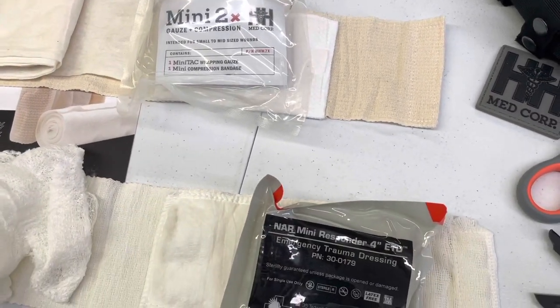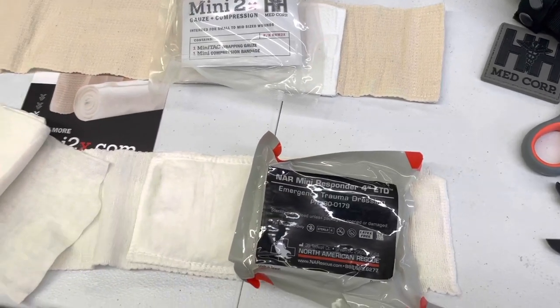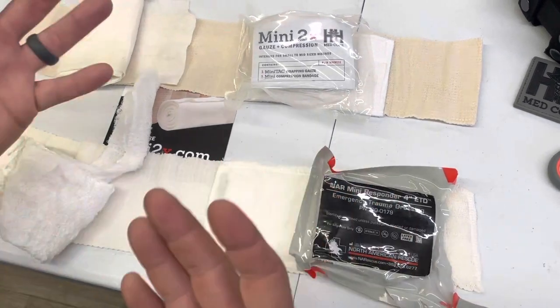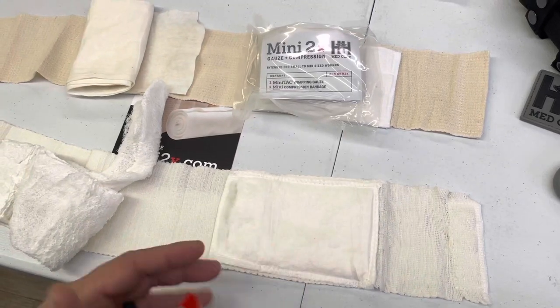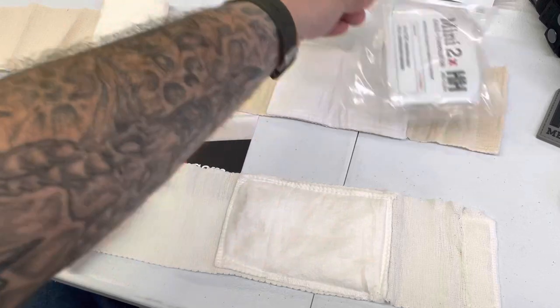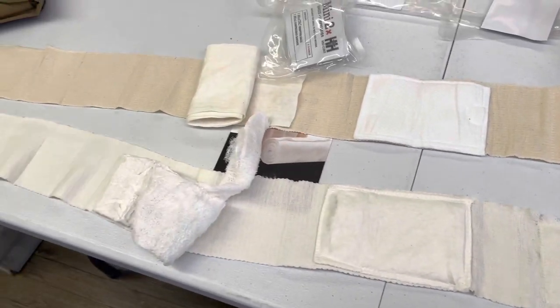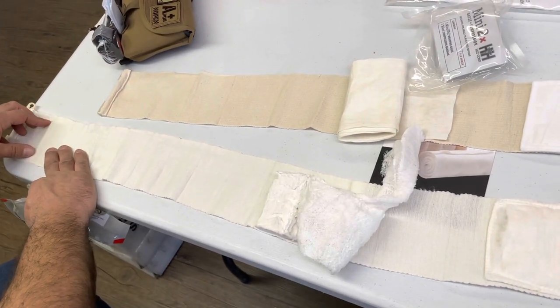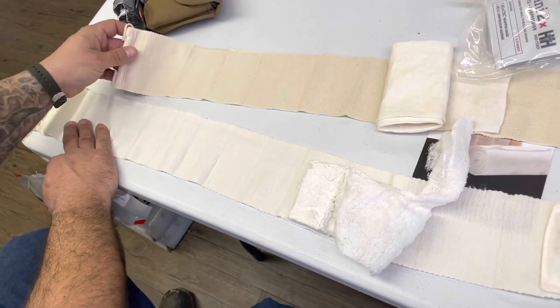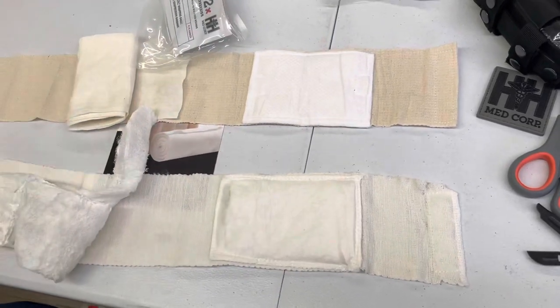I like the H&H gauze, but I think the North American Rescue is a better pressure bandage. In a perfect world I'd take the gauze from H&H and pair it with the NAR bandage. All in all I'm happy to continue using North American Rescue in all our kits. The H&H is not bad - it's perfectly adequate - but the thing that lets the NAR pull ahead is that loop at the end, plus it's half a foot longer. When you're freaking out, covered in blood, with your buddy screaming, that loop helps a lot.